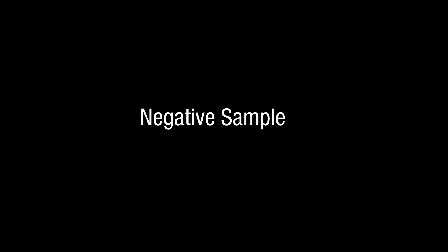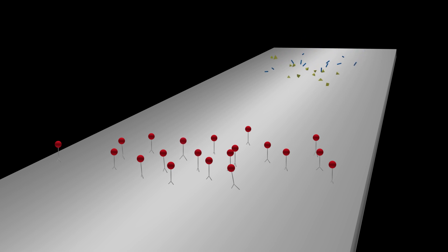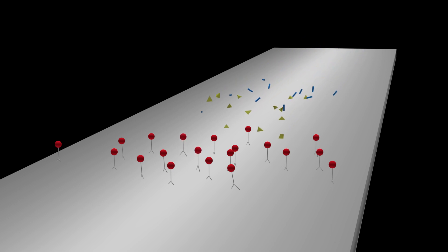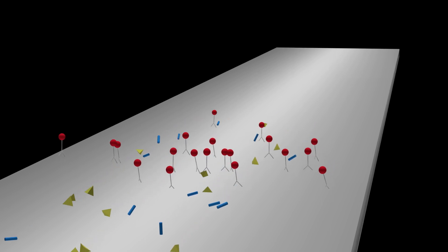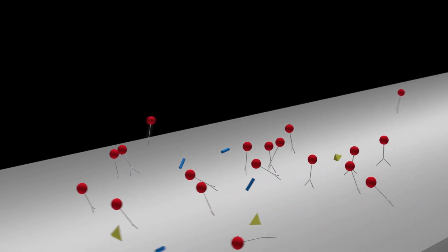Negative sample. The sample is added to the lateral flow device. Liquid traveling up the device picks up the color labeled antibody striped onto the reagent pad.